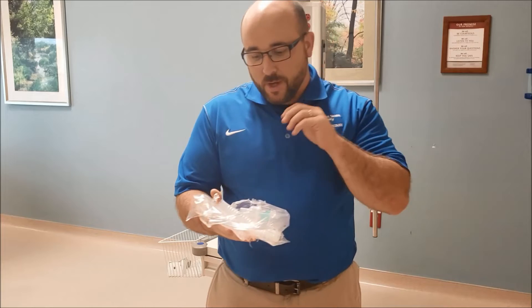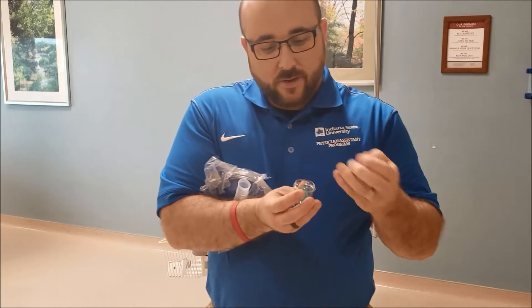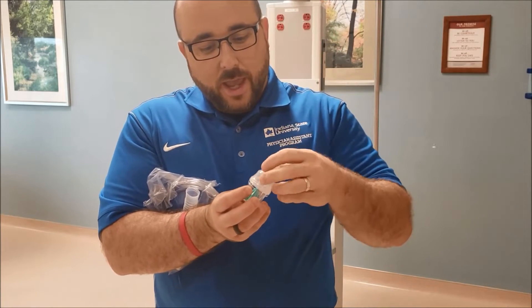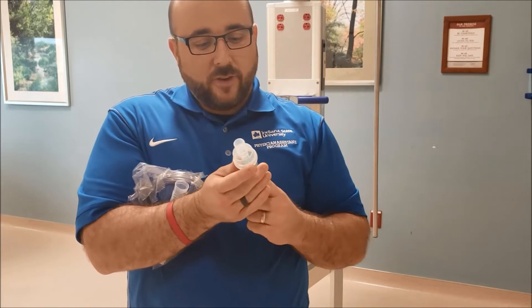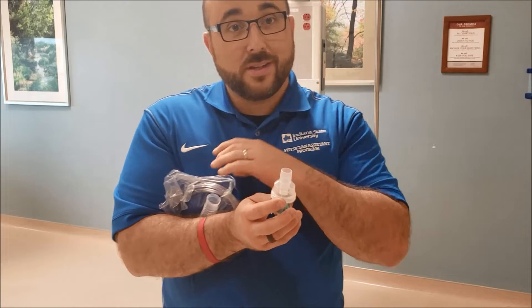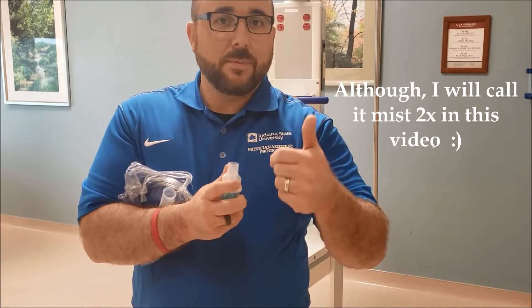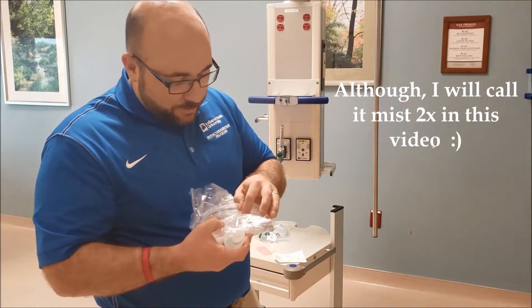There are some basic pieces to a nebulizer. First, of course, you're going to have the nebulizer. Inside of it, as you take off the top, you see there's going to be a baffle in here. Oxygen — or air, in your case if you're at home — is going to come through this side. It's going to cause splattering of the medication and break it up into a really small particle size. We don't like to call it smoke or mist; we call it nebulized medication, because that's exactly what it is. So let me attach that to the next piece.